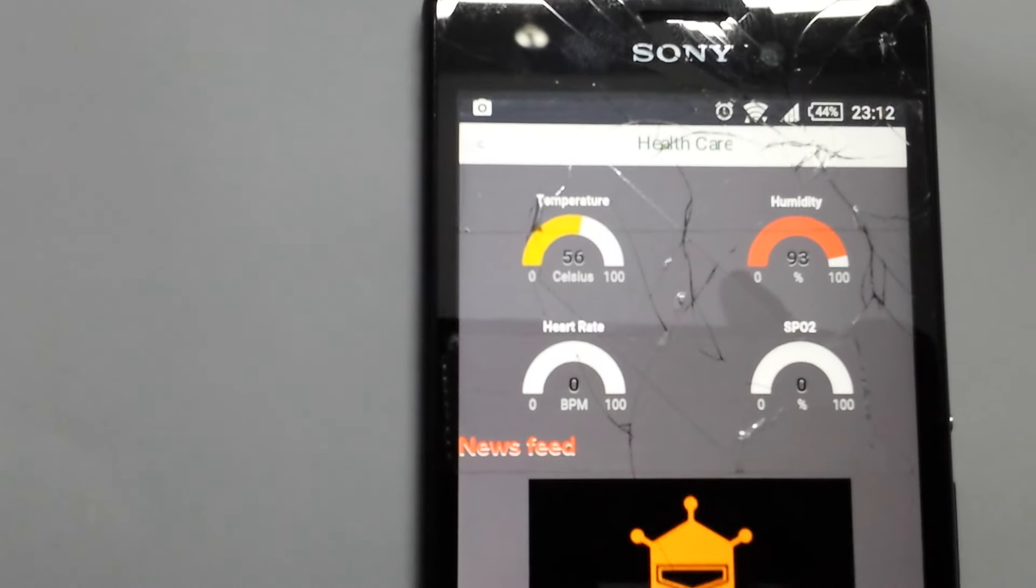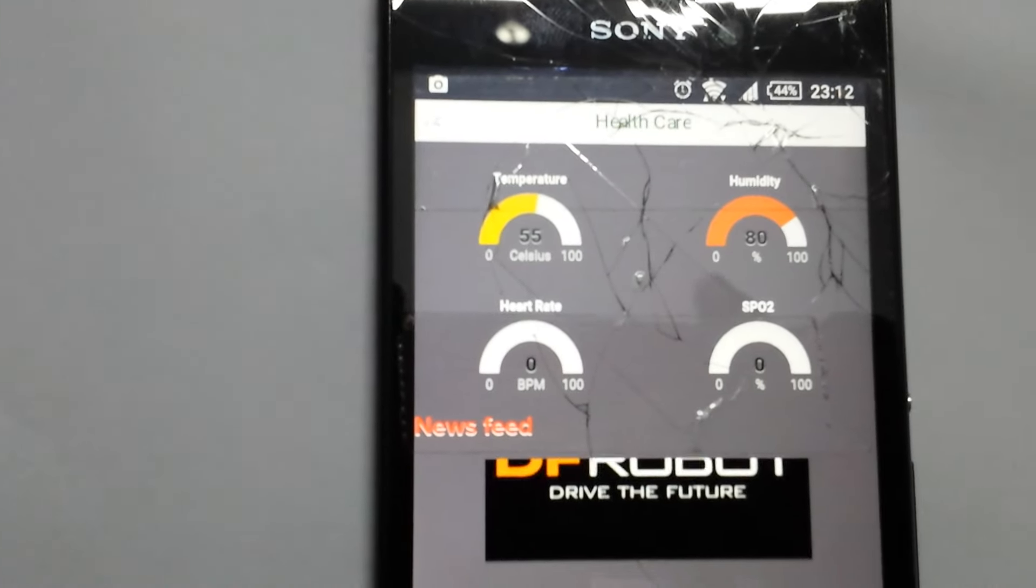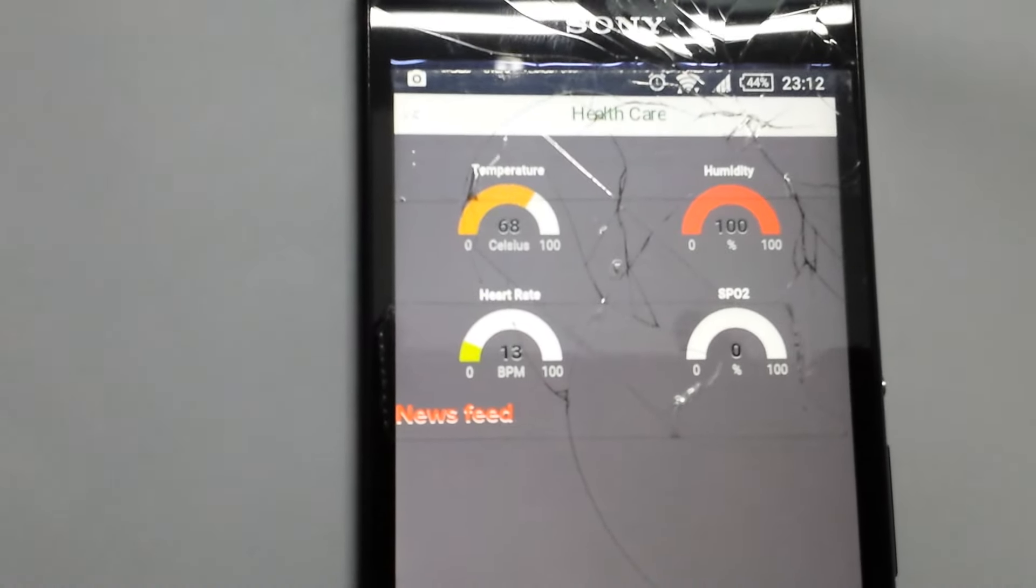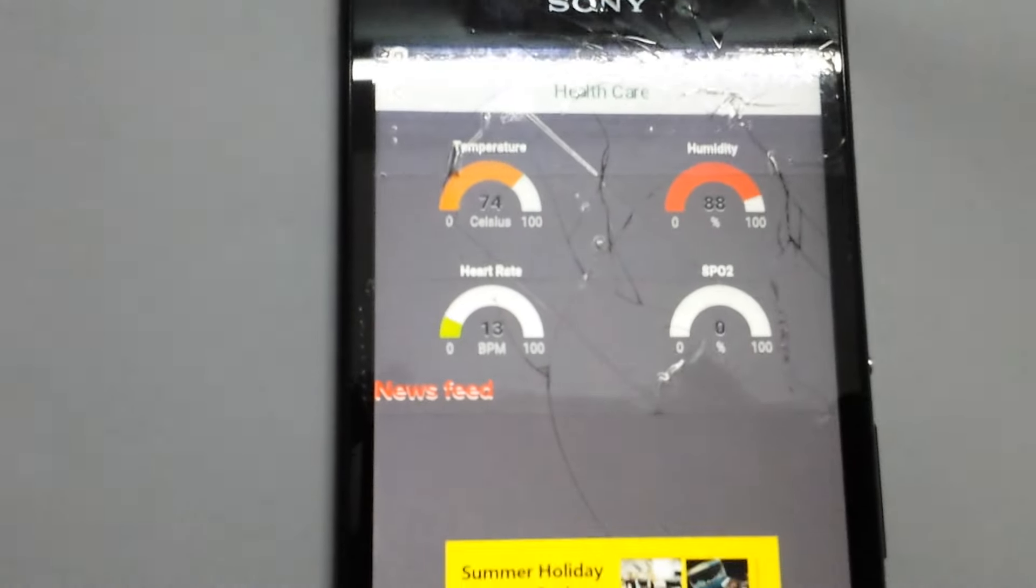This is a mobile app built for monitoring the heart rate of a patient.